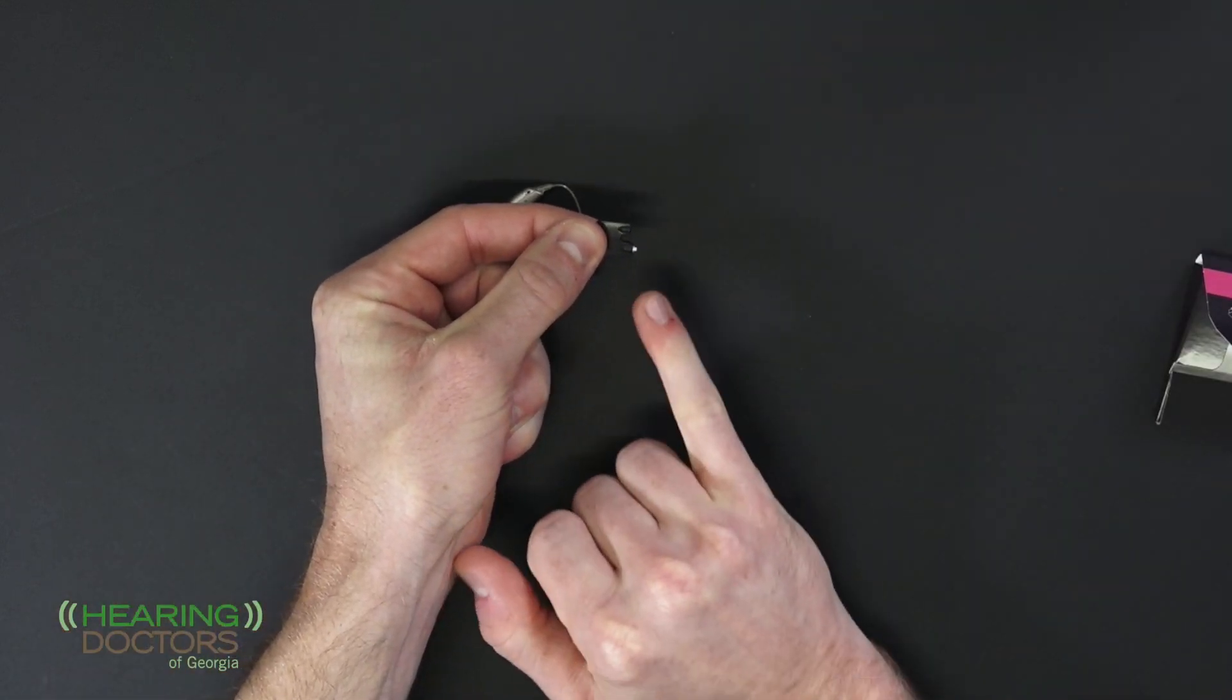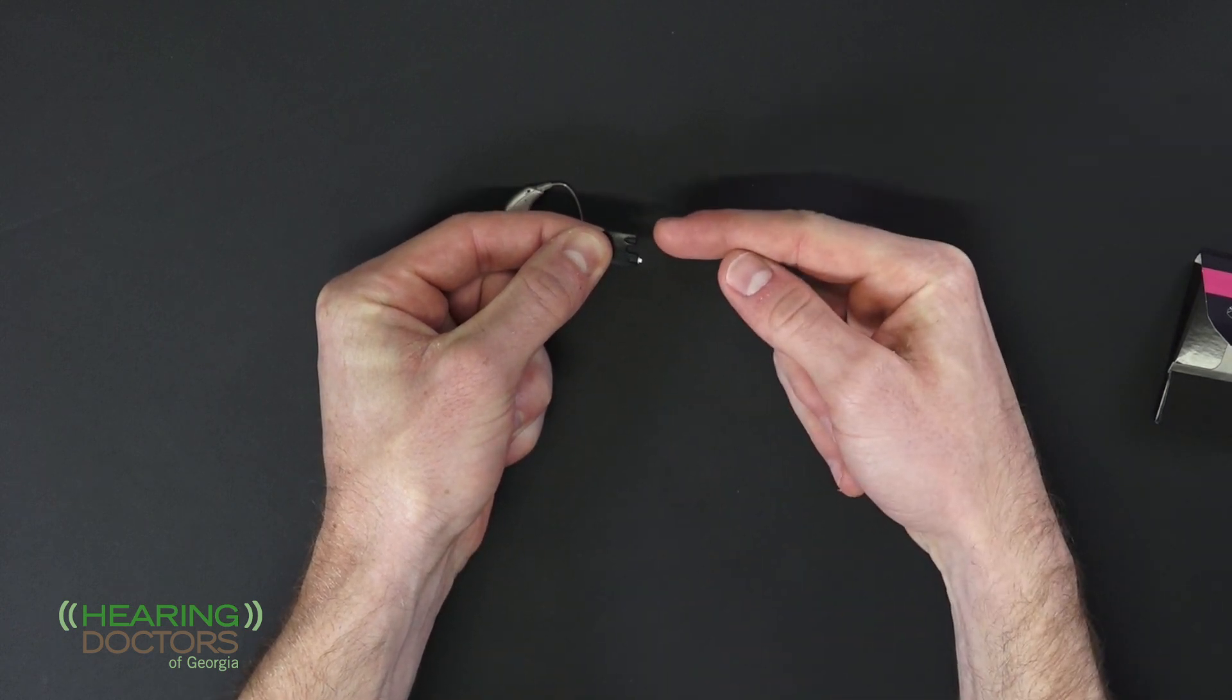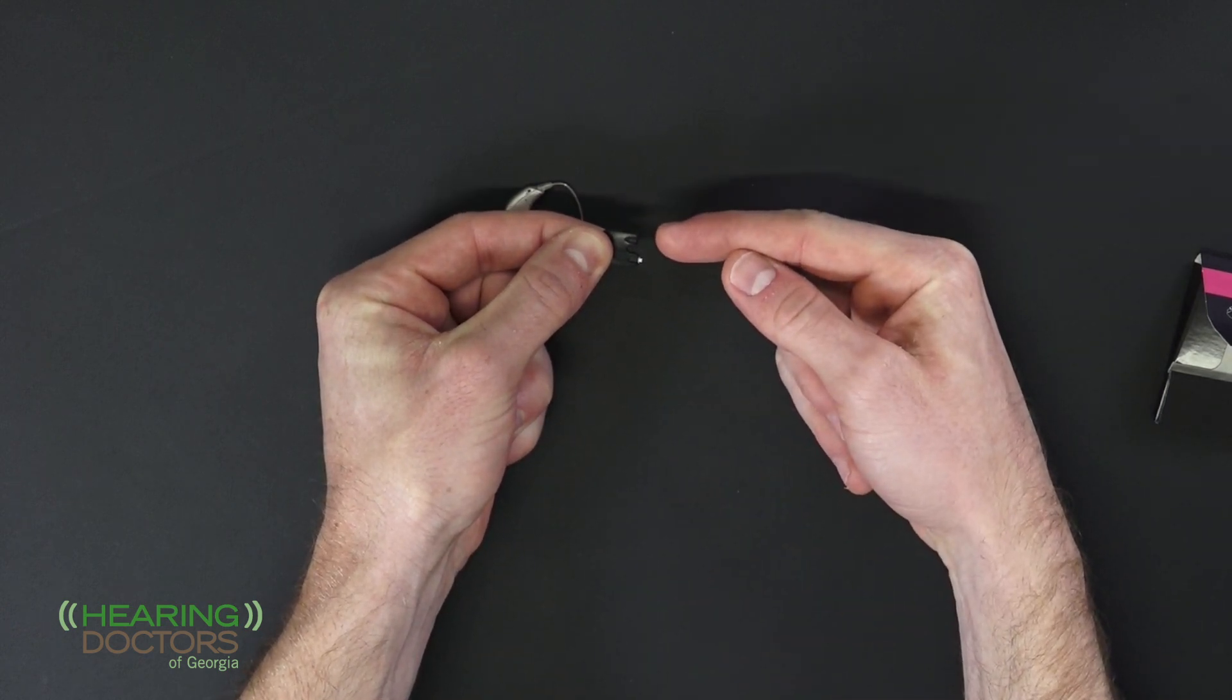When you look, one end has the brand new filter. The other is the way to take out the old filter.